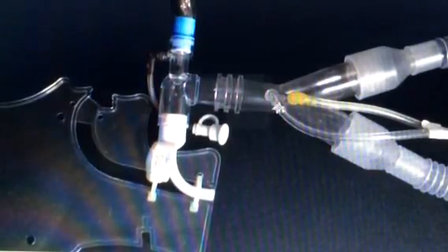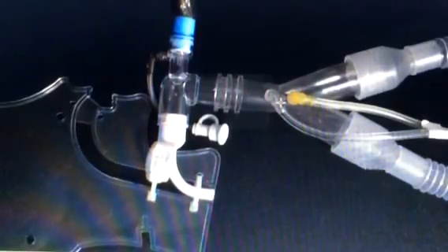But also, there's a little venturi device inside the tubing. It looks like a little airplane wing. It measures pressure on either side of that tube, and it calculates the volume, the flow, and that's what triggers the disconnect and the high pressure and the low pressure alarms.